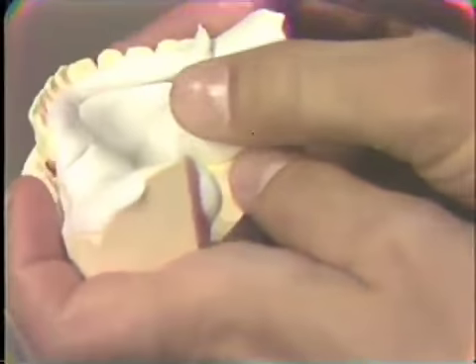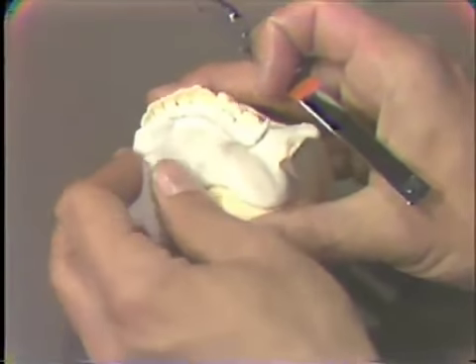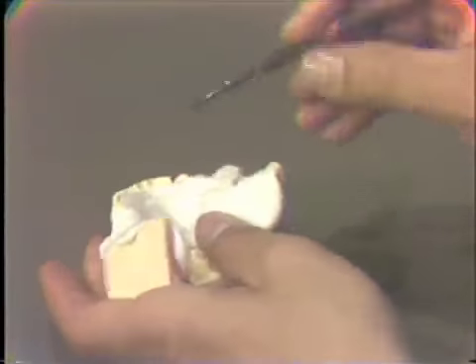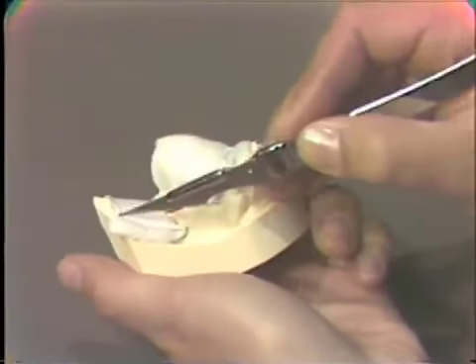Now make sure that we press on the lingual areas where those wires are so that they are going to be incorporated and wrap around the wire, the bend in the two planes, and so there will be no problem of retention of the wire. Now I would continue to trim this acrylic both from the lingual and from the buccal, such as this.